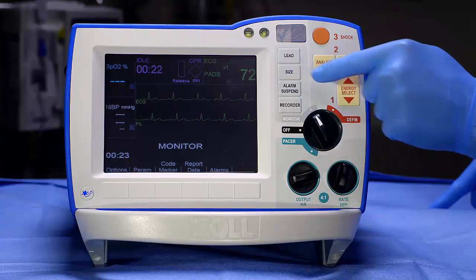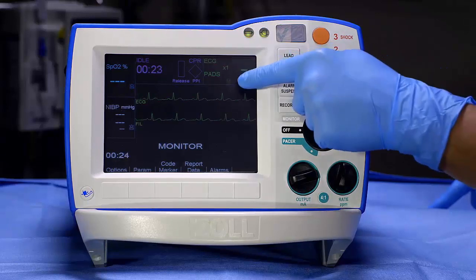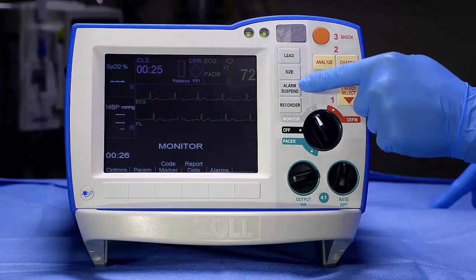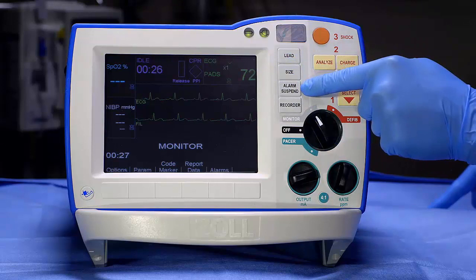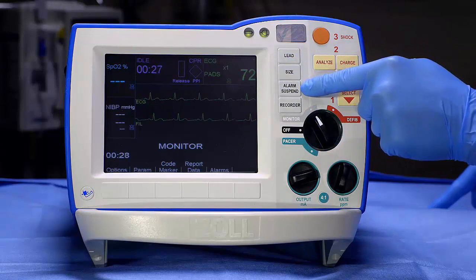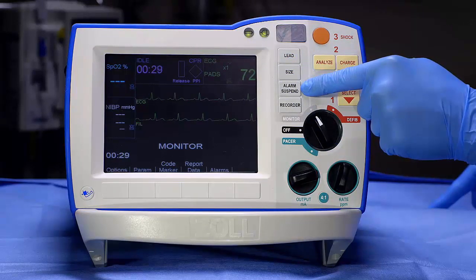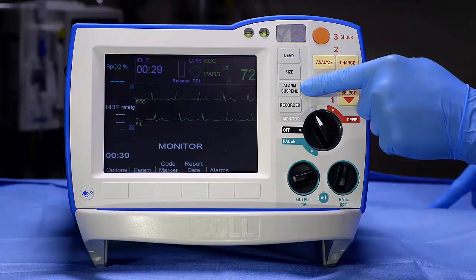To disable all alarms for the duration of the event, press and hold the Alarm Suspend button until all of the alarm icons have an X through them.